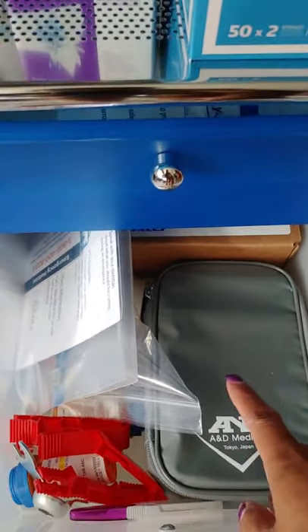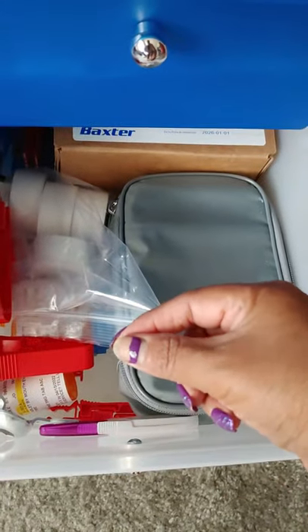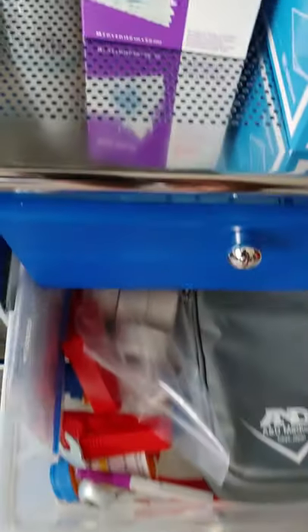On the other side I have my blood pressure container that DaVita gives you. This is important information — if something goes down, I can give this to the ambulance or hospital and it shows lab work and stuff so they have an idea. I have extra clamps and clasps. I also have a pair of little scissors in here because you've got to open packages. You could tear them, but really, what's the point? Just use scissors. There's extra tape, and then back here is my box of those. And this is your little trusty measurement thing.